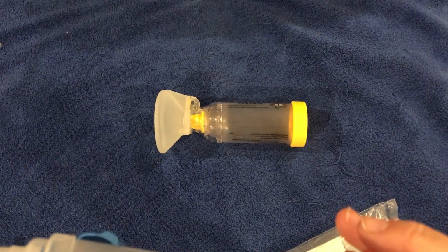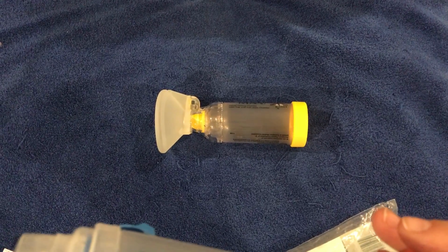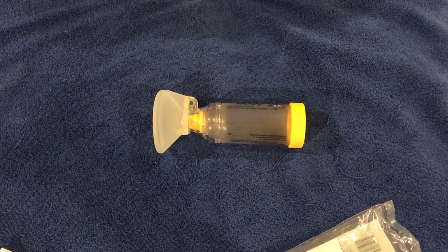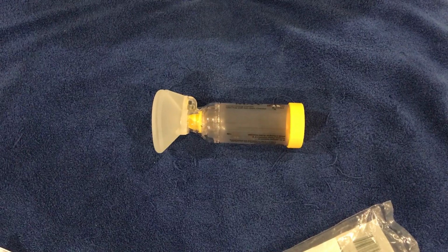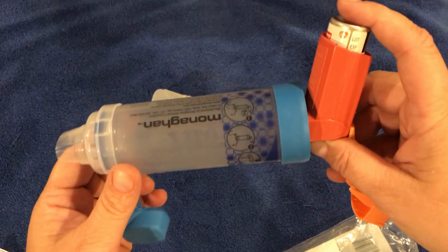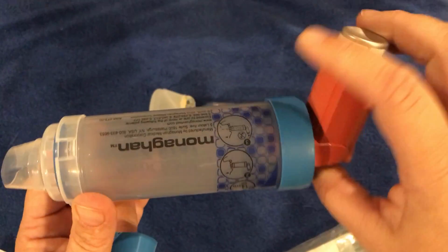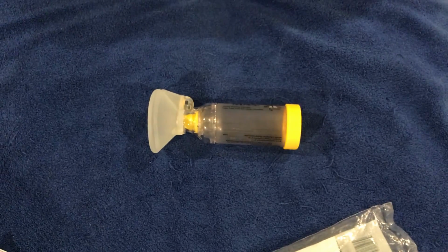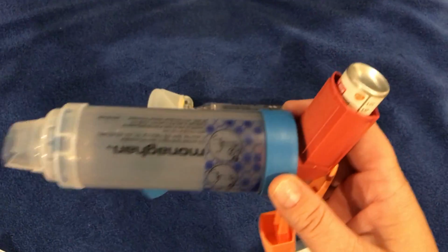He holds the medication for a few seconds, his mouth closed, like 2 or 3 breaths. Following the doctor's order, he might or might not have to repeat the procedure. Then he's gonna put the medication again and inhale. When there's no noise, it means there's no medication in the chamber.